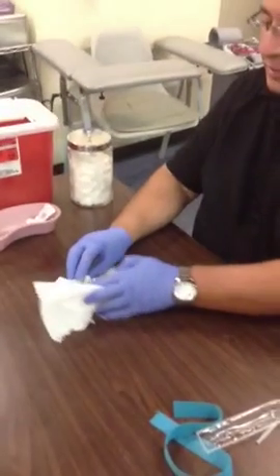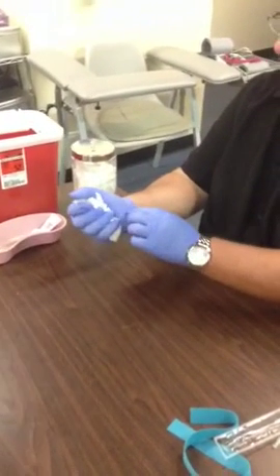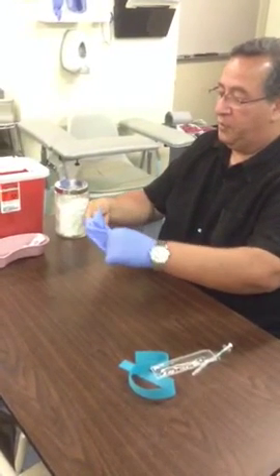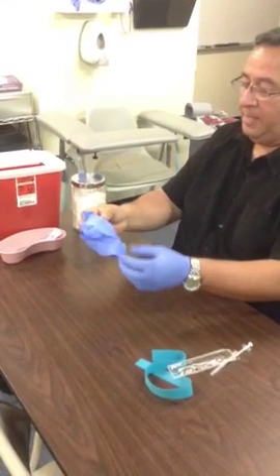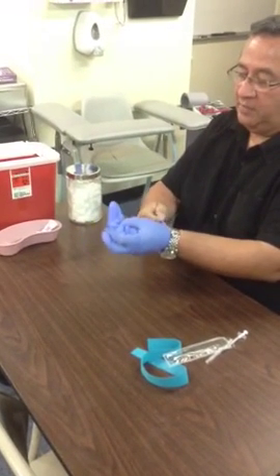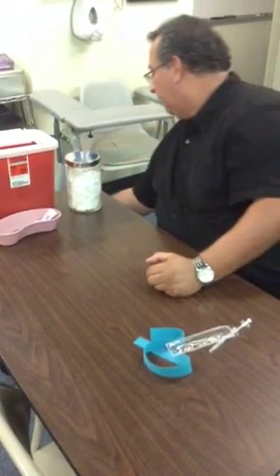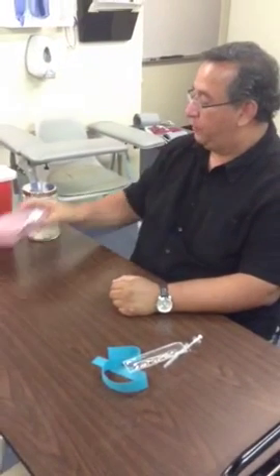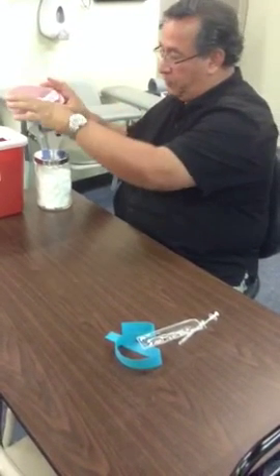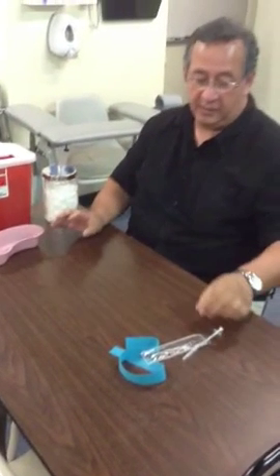Please remember that most of your supplies, including all your trash on the table, is regular trash — it doesn't go into the sharps. Take the paper and other trash, place it inside one glove, and turn one glove inside out over the other. Make sure all your trash goes into the regular trash. Remember to check for needles, because needles go into sharps, not regular trash. Then you're ready to begin the next procedure.